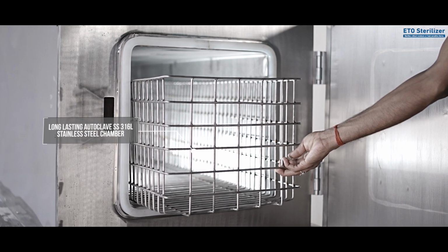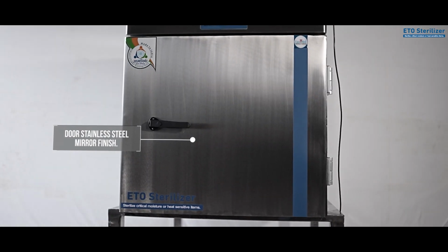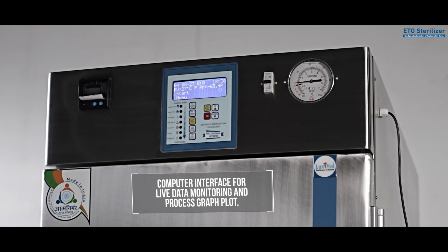Long-lasting autoclave SS316L stainless steel chamber. Door stainless steel mirror finish. Built-in thermal printer for printed process data. Computer interface for live data monitoring and process graph plot.